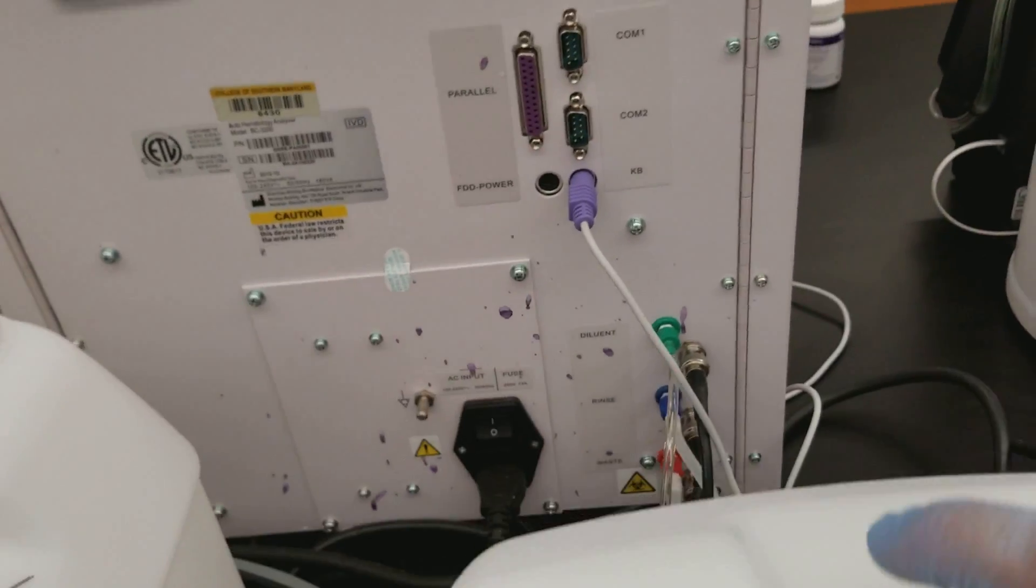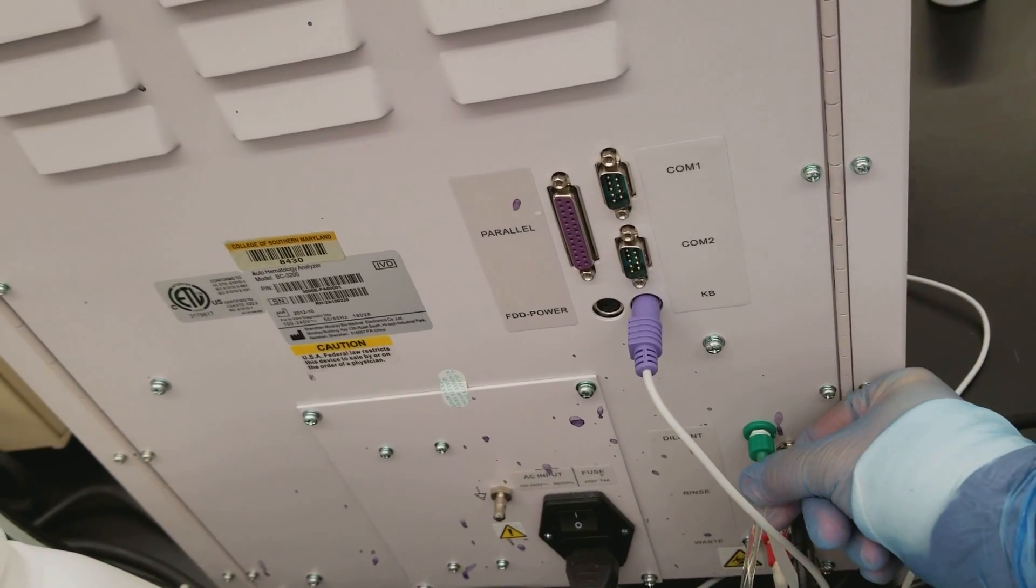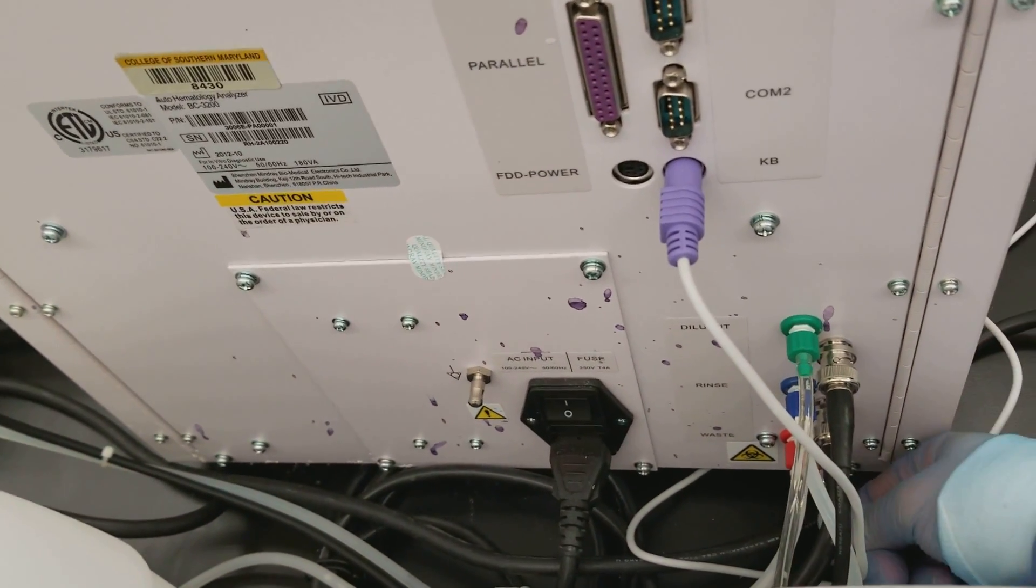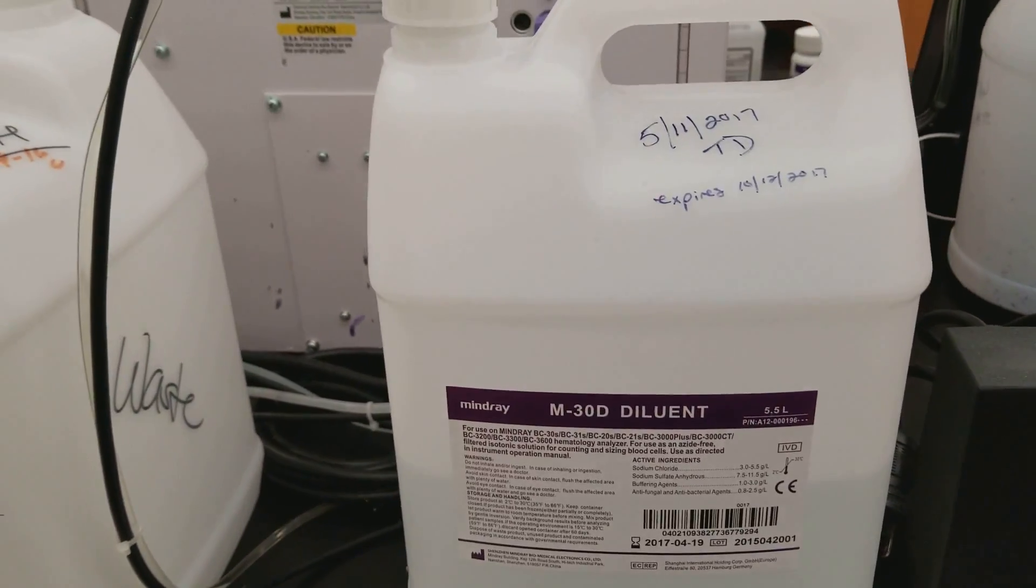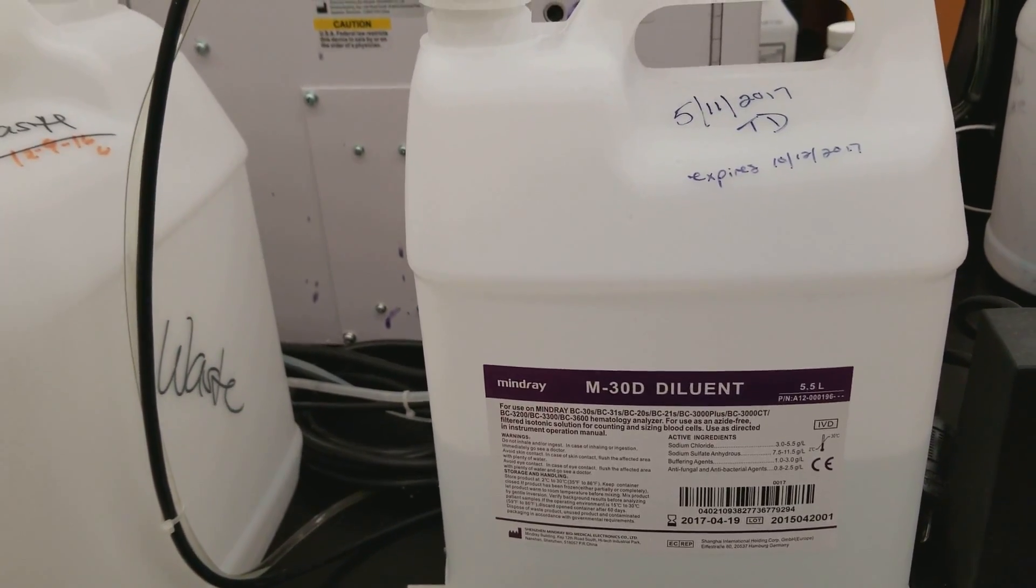My diluent and my tubing, the tubing was really good, everything seems tight, there aren't any bubbles in any of them, so that's good. But the diluent is expired, so we are going to replace the diluent and see if that helps.